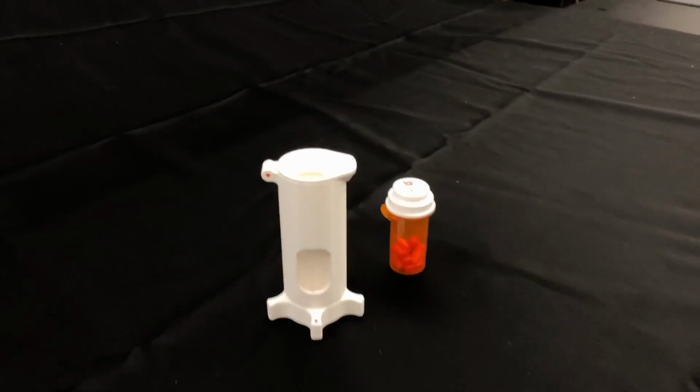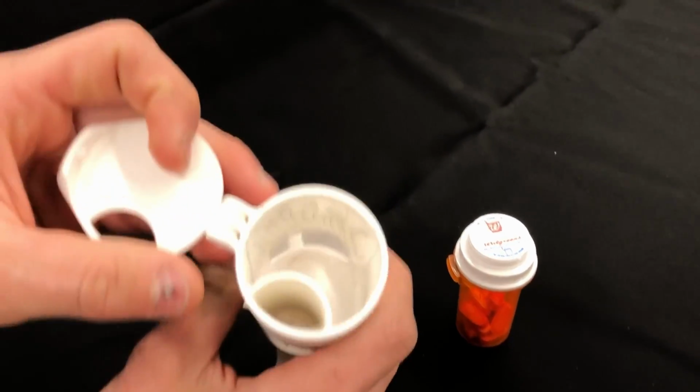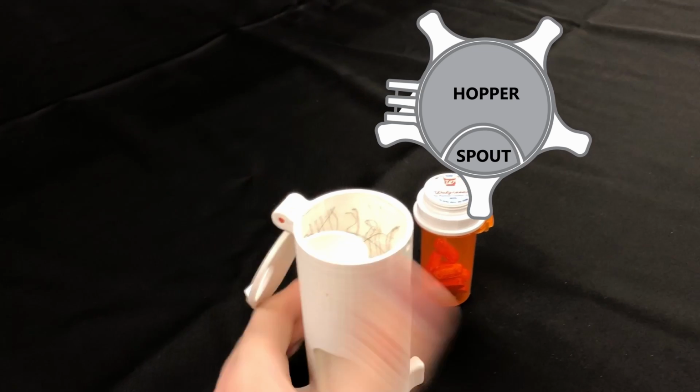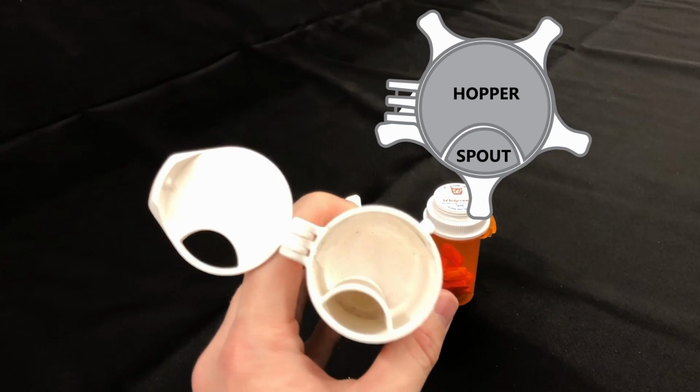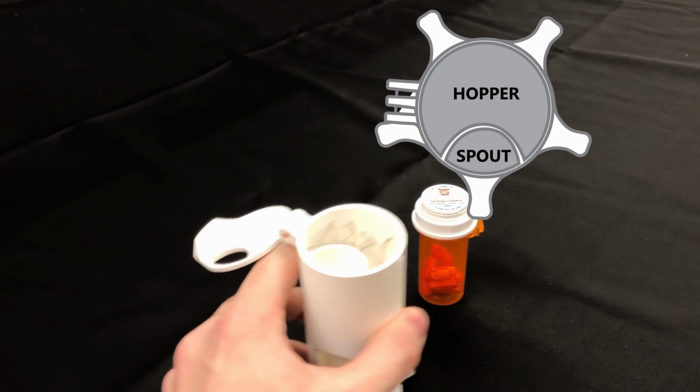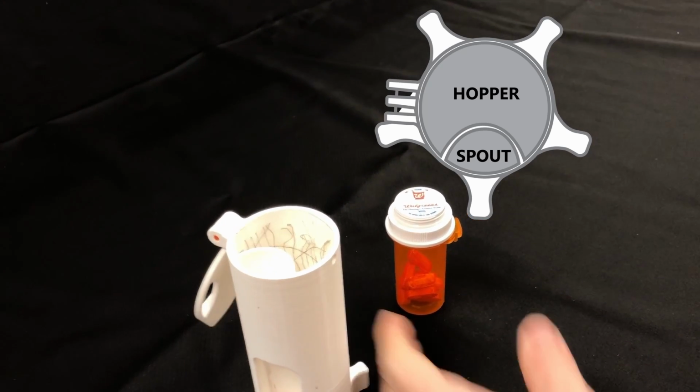The pill dispenser is a flip-top cap that can be opened, showing the two sections to the main body of the pill dispenser. The smaller opening as seen on the bottom here is the spout. When dispensed, pills will exit through this tube. The larger opening is the hopper. This is where the pills are stored.